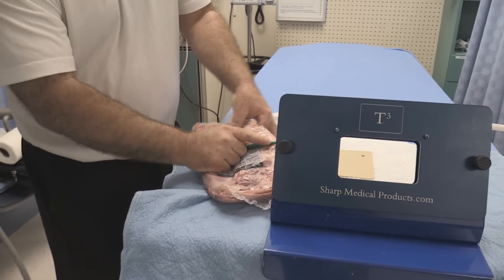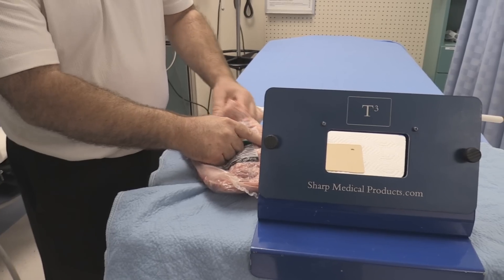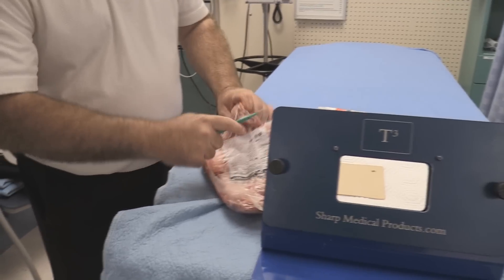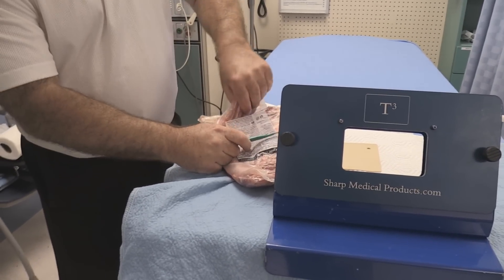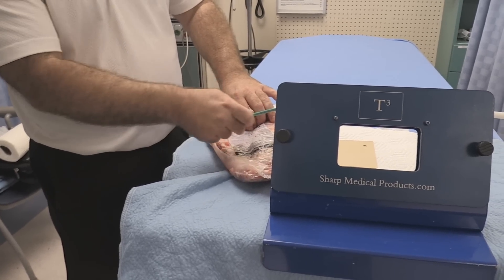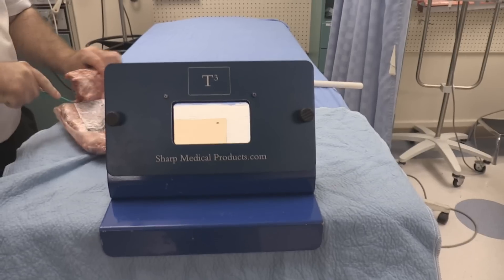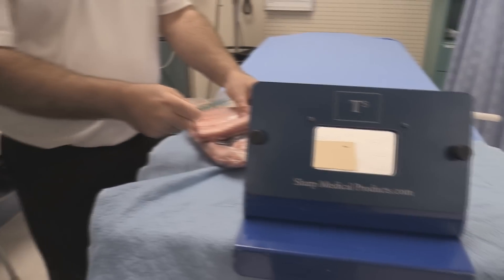What we're demonstrating today is a device that will allow you to practice chest tubes. You can do it in different ways — you can use our device called the Reactor, or you can do regular manual chest tube insertions. This particular device, or a version of it, can be used for training on standard chest tubes.